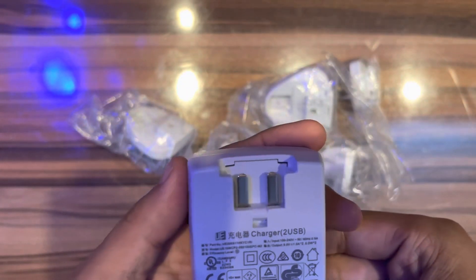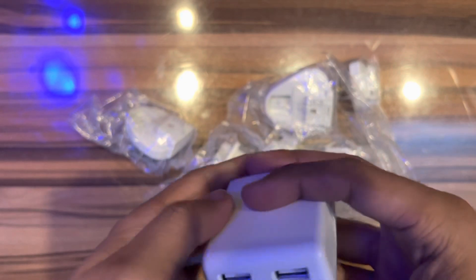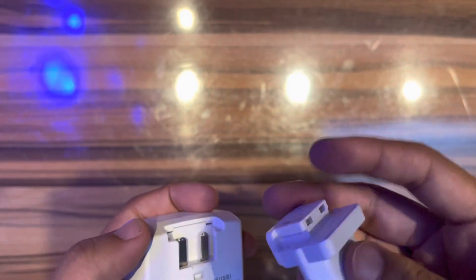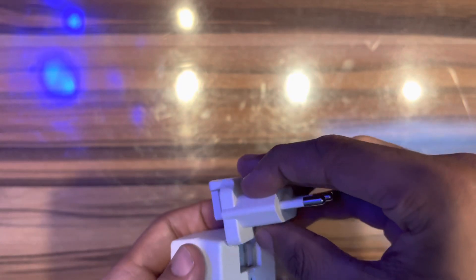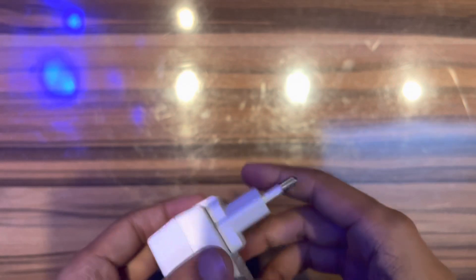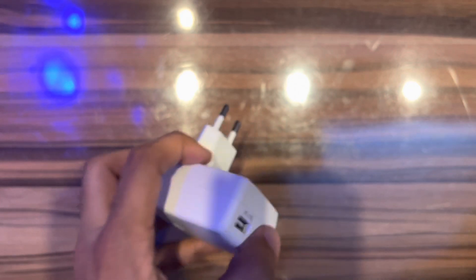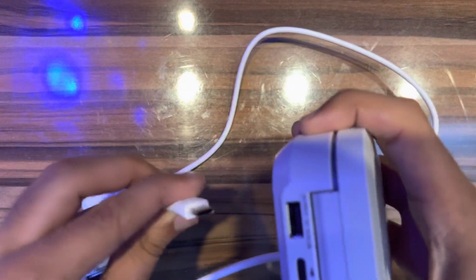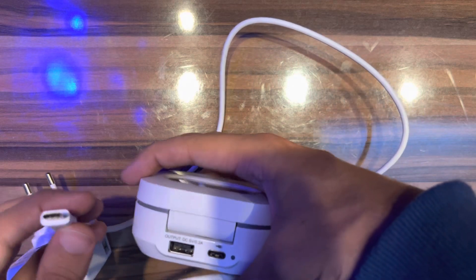I will use two USB ports for both sound processors. I'll use this for India. Let me show how to connect this — yes, it's done. Let me connect the USB cable. It fits well. I will connect this to the home charger with the Type-C cable.